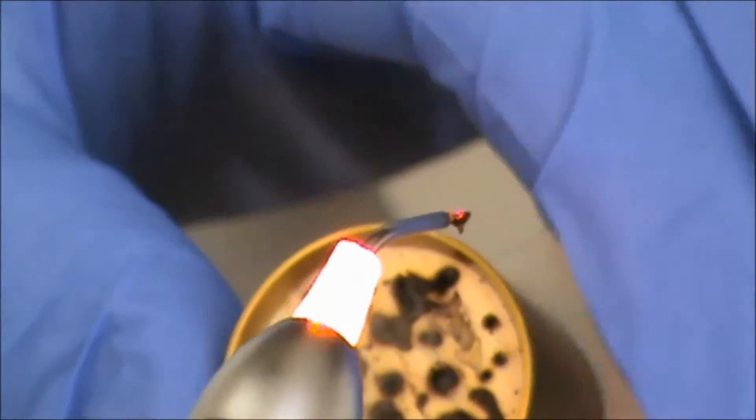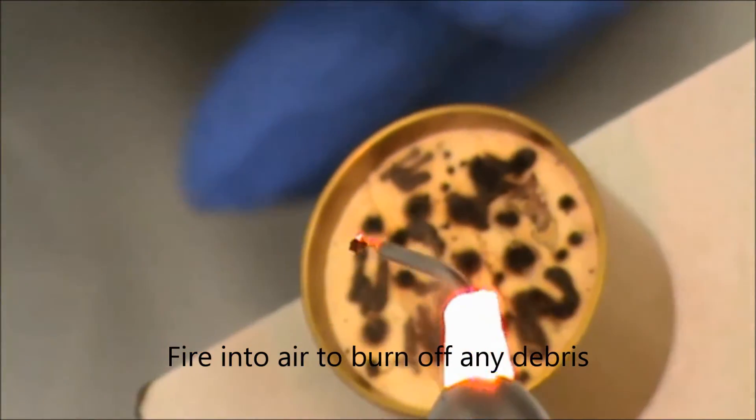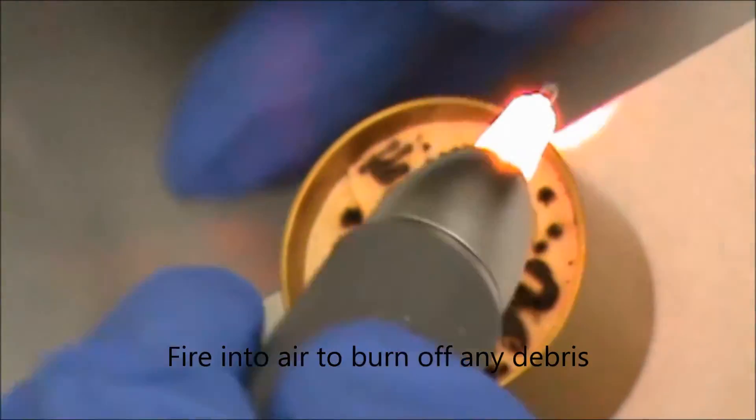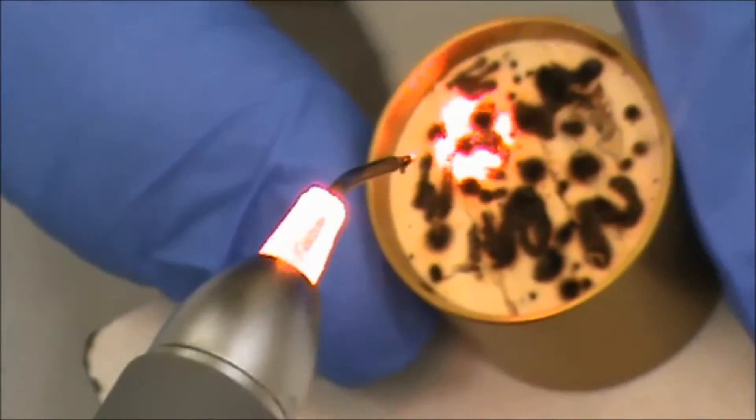And then fire it into the air one time, which will burn off that material from initiation.